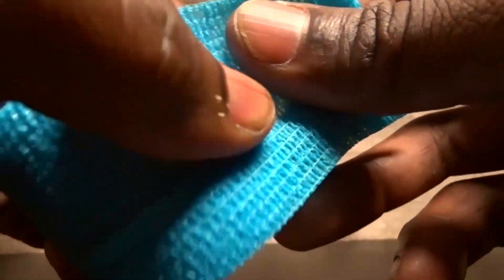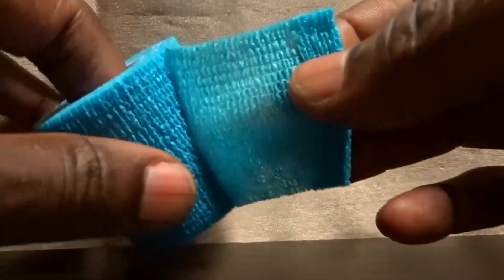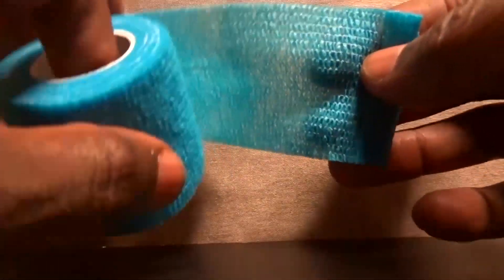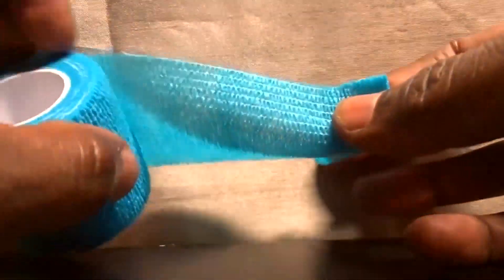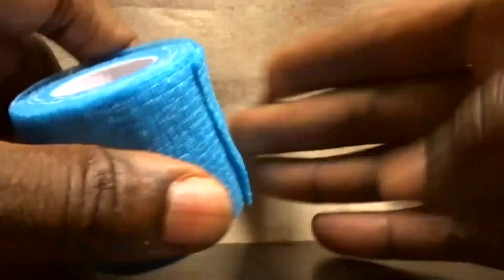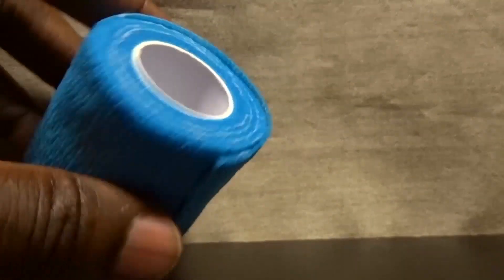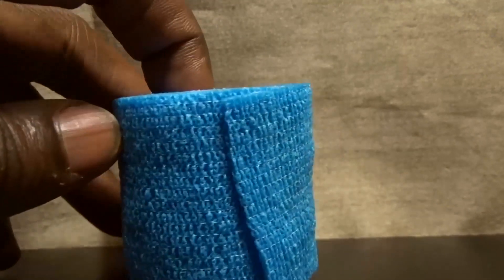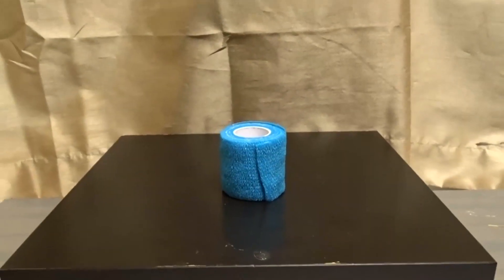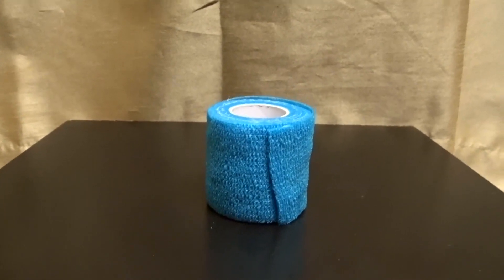If I push this to its own self — see, you have to take that off. It's like tacky paper. When you wrap it around something and then secure it onto itself, it stays. So you don't need to add any pins or extra tape. If your wound is around your arm or your leg, to tie it down you won't need to do that — it just sticks to itself very, very well.